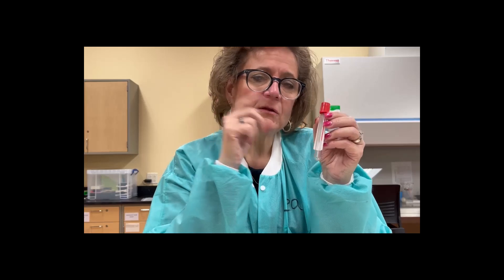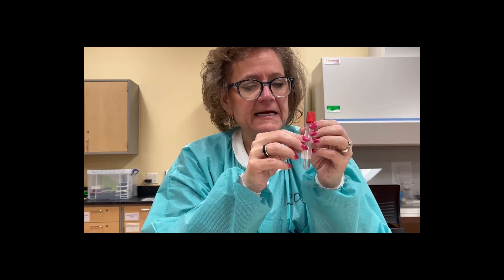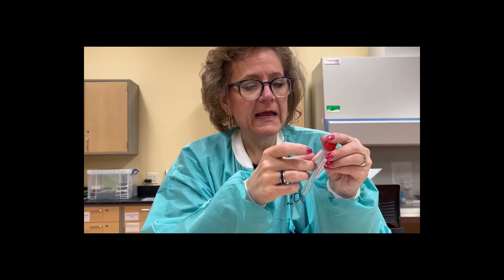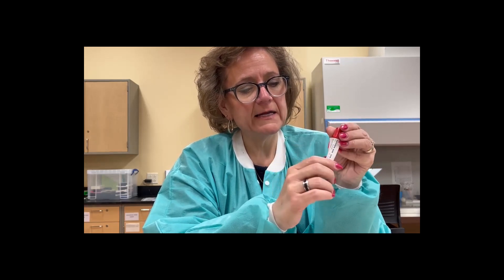In the lab, I may have to aliquot off part of this tube, and I can actually see in the window what I'm looking at — where I can actually pull off the plasma or the serum and not touch the cells. If somebody decides to cover my window, I'm trying to figure out what I'm looking at and I can't see what's going on in my tube.